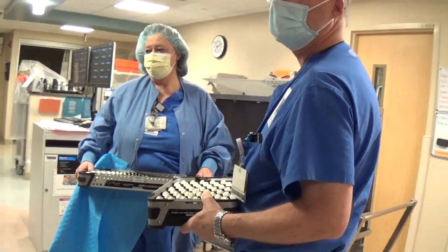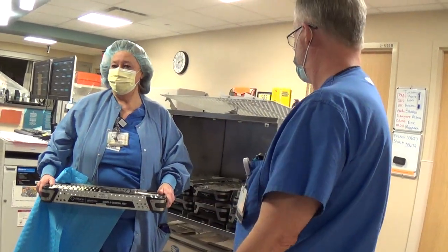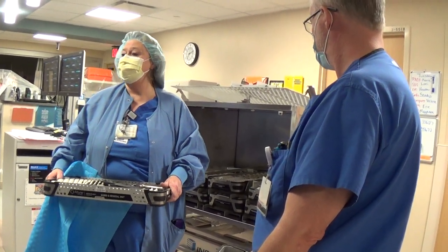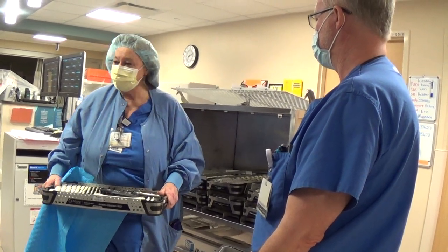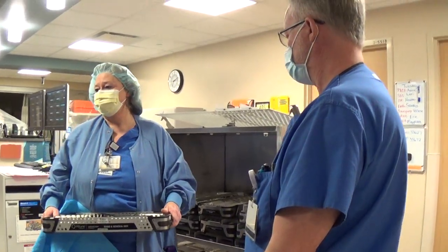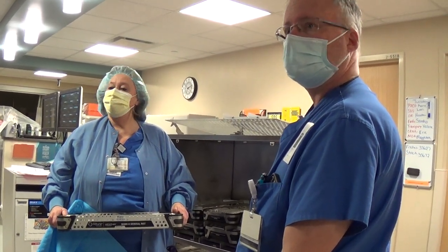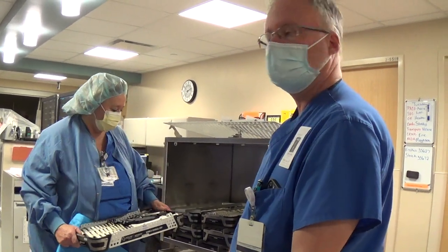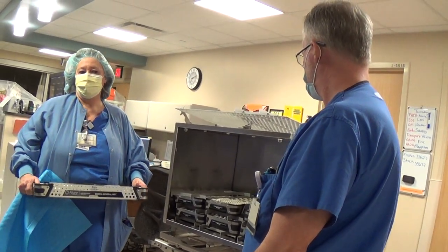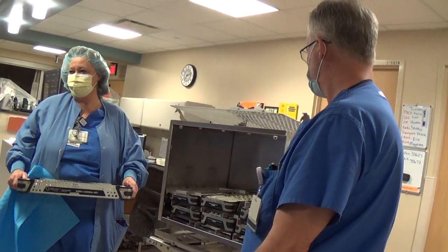We're going to have a backup. So if we have, let's say, three DePuy knees and your first knee you open up and there's water in it, then we're going to give you that third knee, pull it in, and let you set up in time. We'll have this ready for you again. I just didn't know if there's more of a risk of having water in there. Well, we're going to do a lot of runs because I did this one last night and there's no water. So we're going to do a lot of runs to make sure. And it's a trial, but we're going to definitely have you a backup just in case because we don't want to delay any cases.